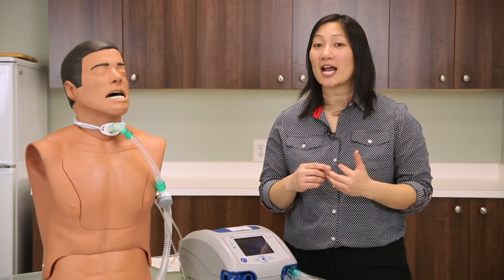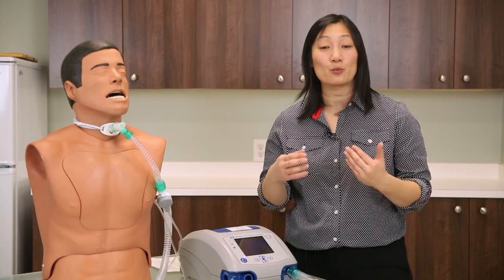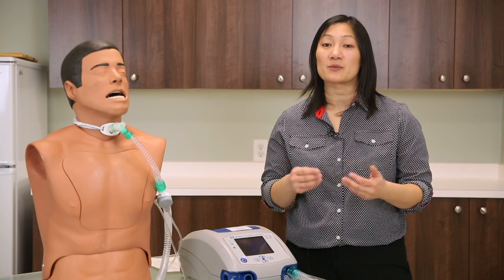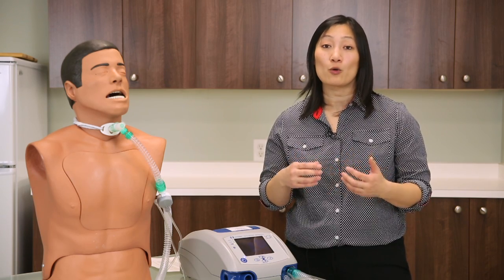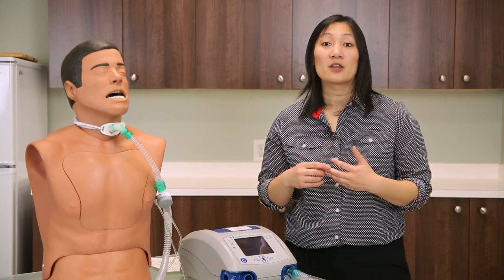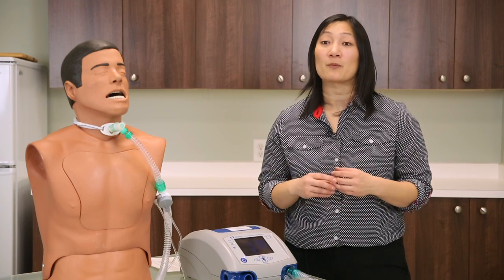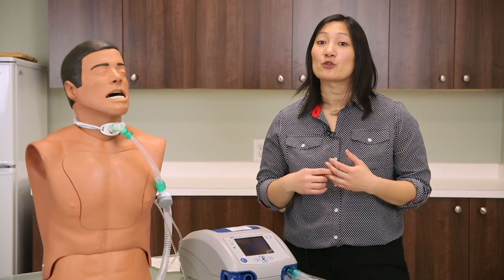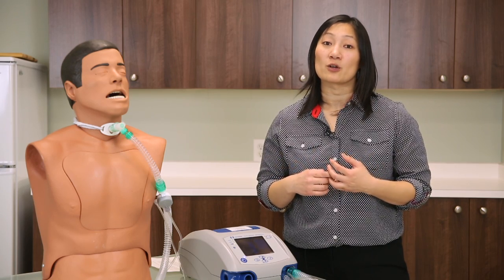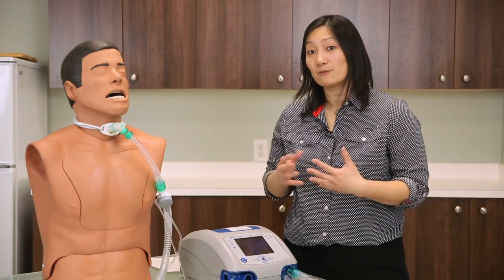Lastly, take into account if your client has a modified Jackson tube with a Pearson adapter. Because the tracheostomy is so narrow, when assessing your low pressure alarm the back pressure generated in the circuit with this breathing tube will be fairly high, so your low pressure alarm will actually be set a lot higher than what you've seen in this video.